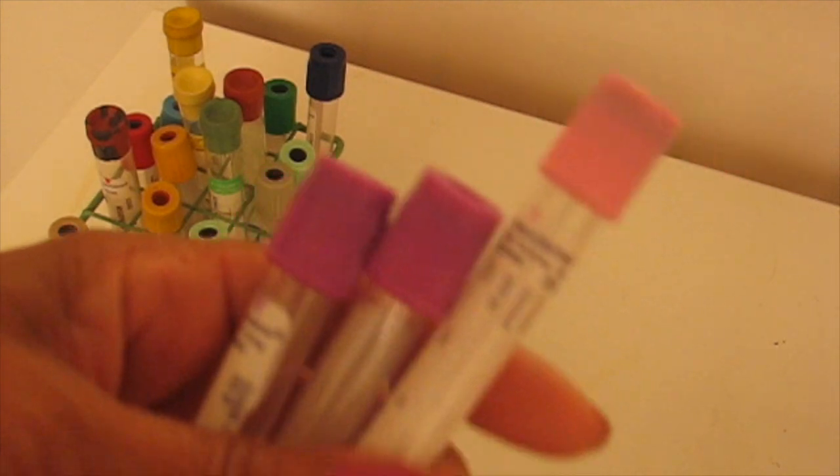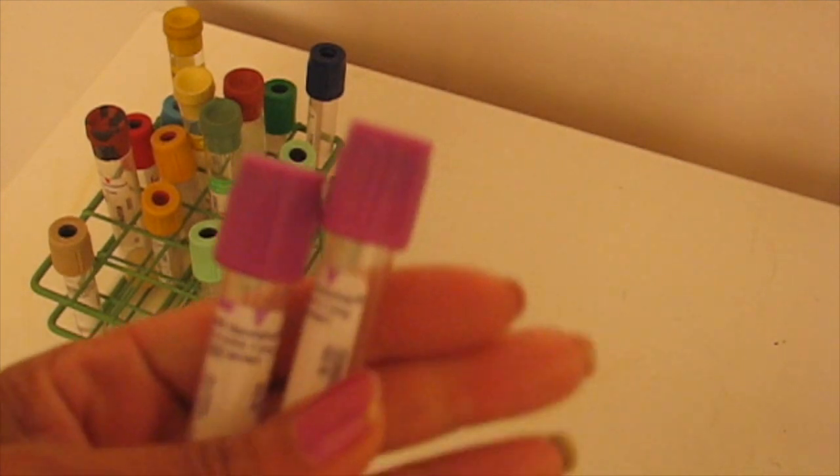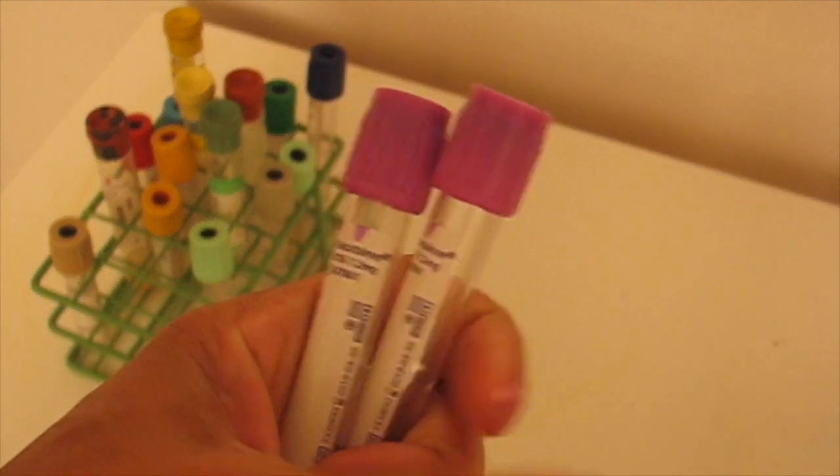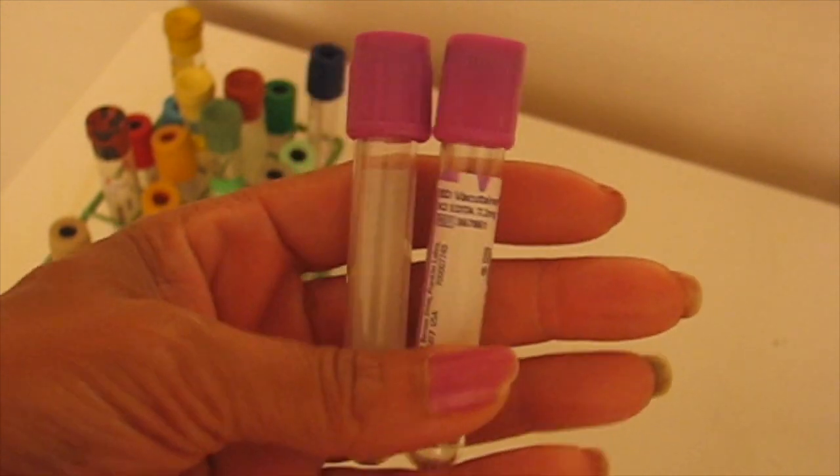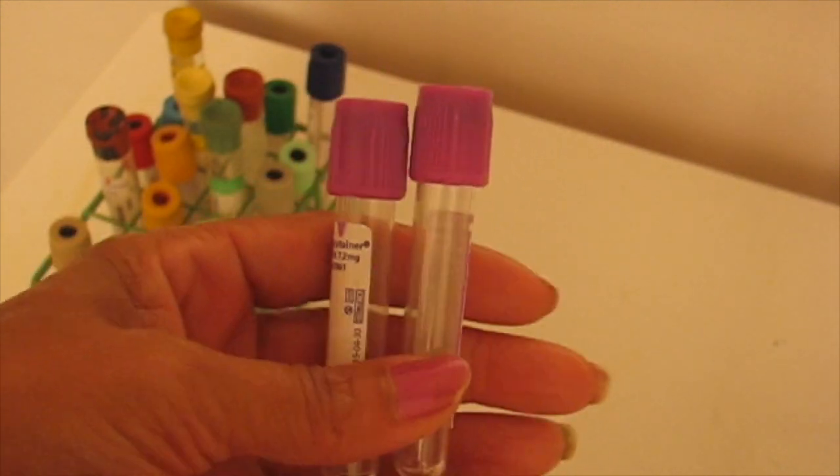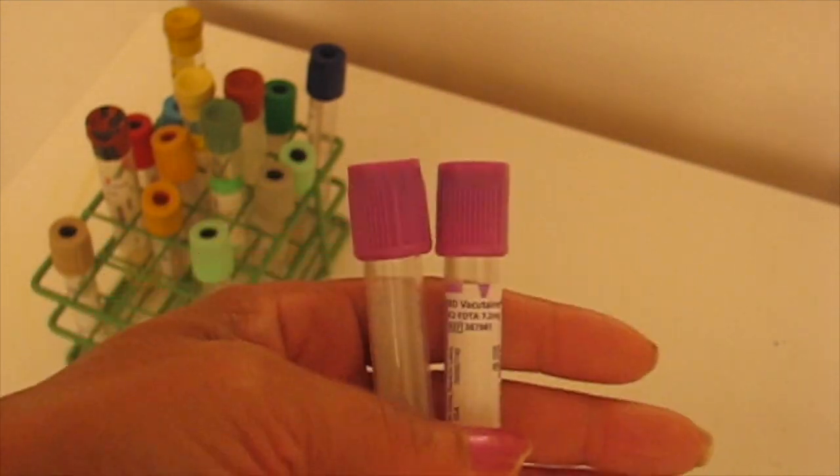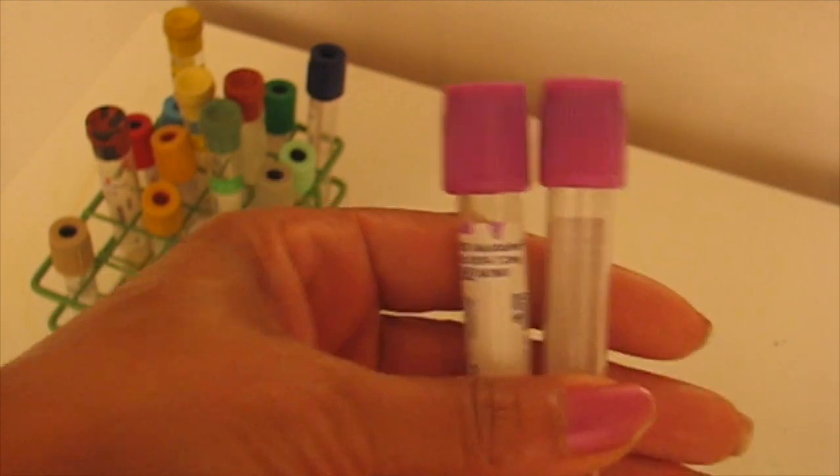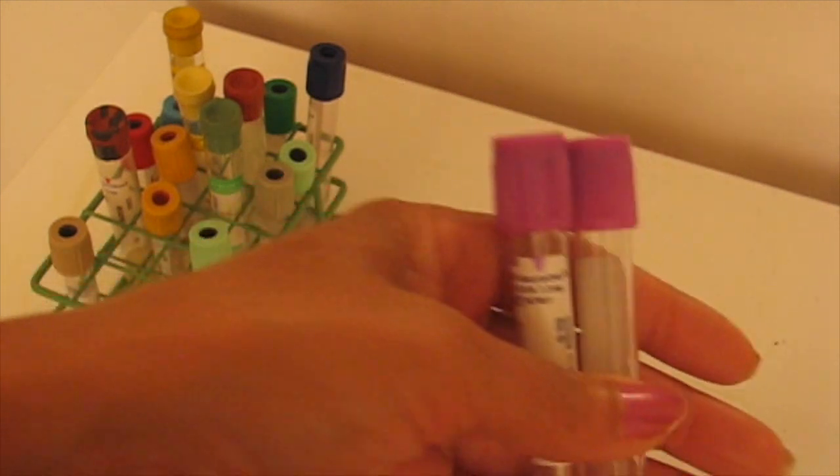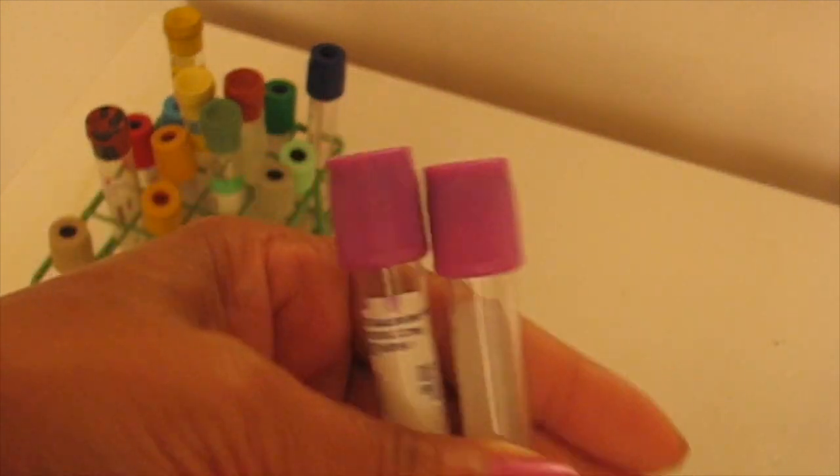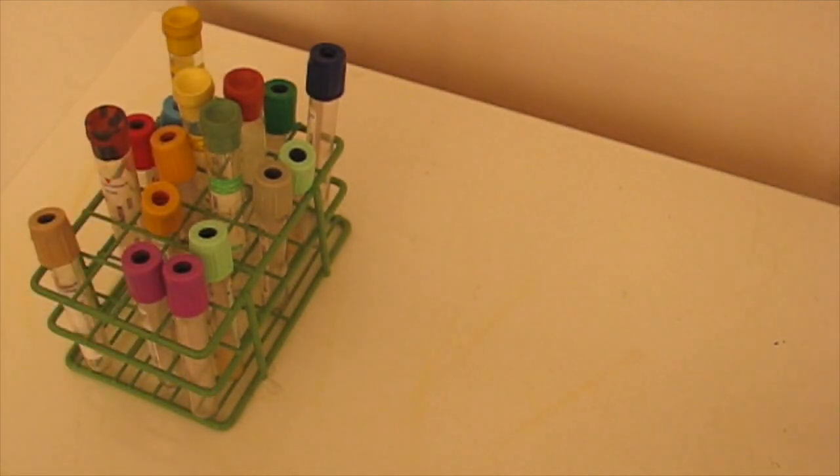I did say pearl because the pearl has a form of EDTA in it as well. But again, CBC goes in one and your A1C goes in another because the A1C is going to be sent to special chemistry. Make sure that your procedure is the same, or if it's different, just make sure you are aware of the differences.